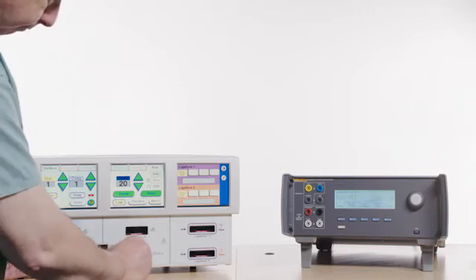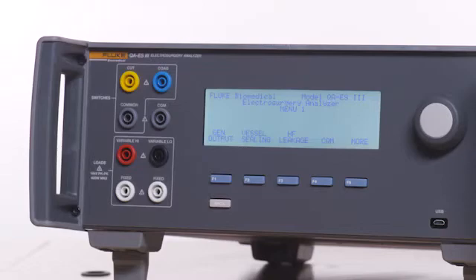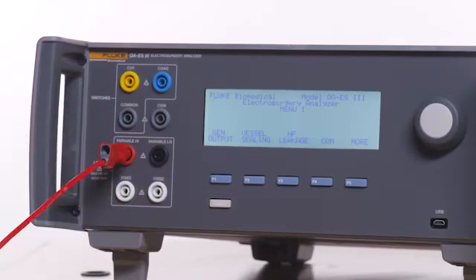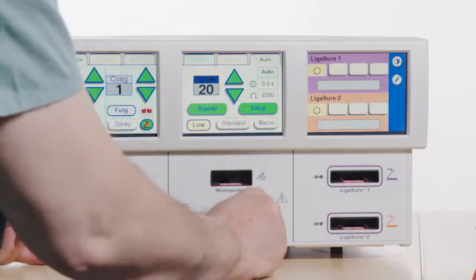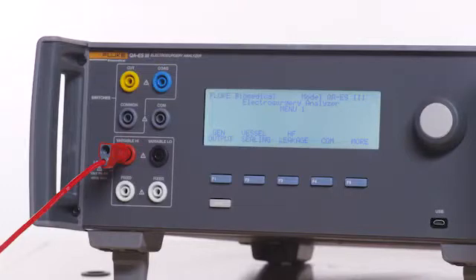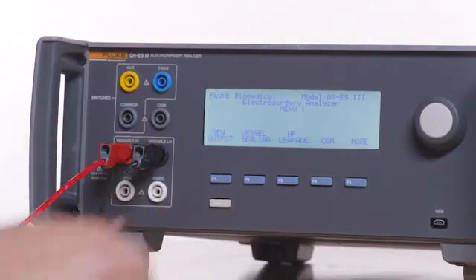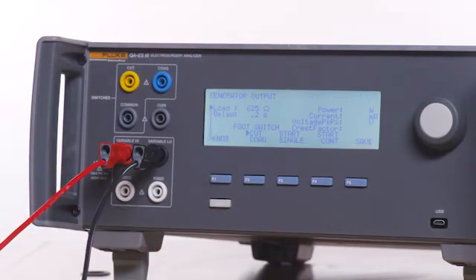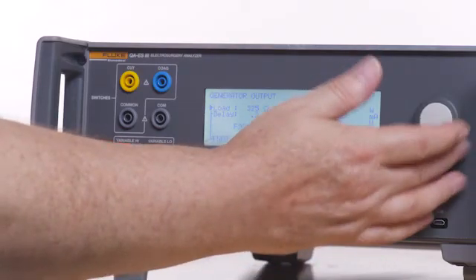Connect the red test lead to either jack on the bipolar port of the Force Triad, then connect the opposite end of the red test lead to the variable high port on the QAES3. Connect the black test lead to the other jack on the bipolar port of the Force Triad, then connect the opposite end of the black test lead to the variable low on the QAES3.